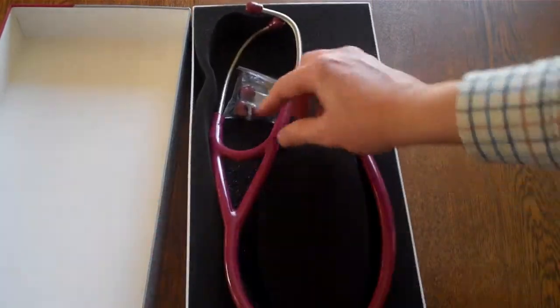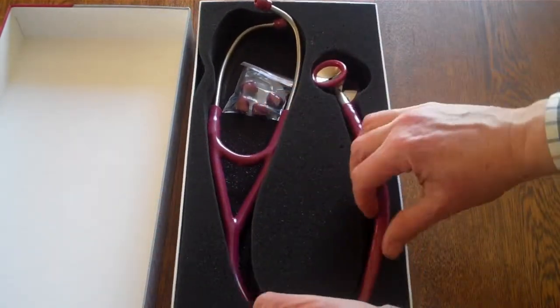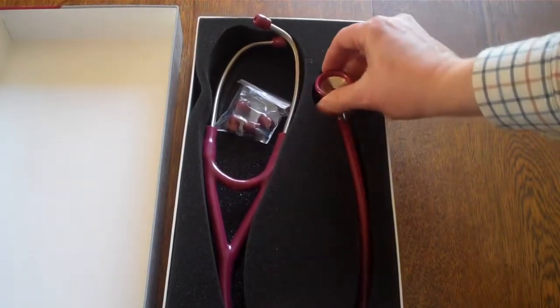Gives good clear heart sound, auscultation, as well as general medical use. It's a really nice robust heavy duty model.